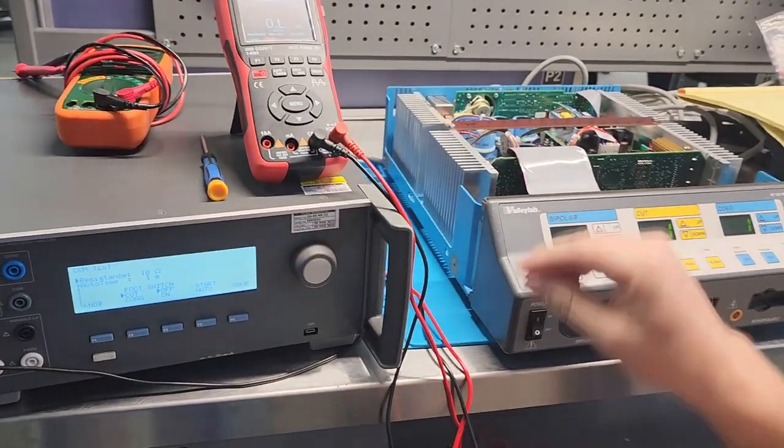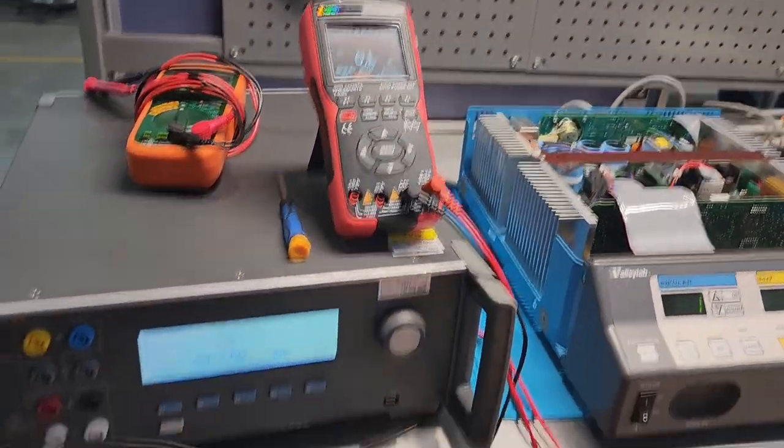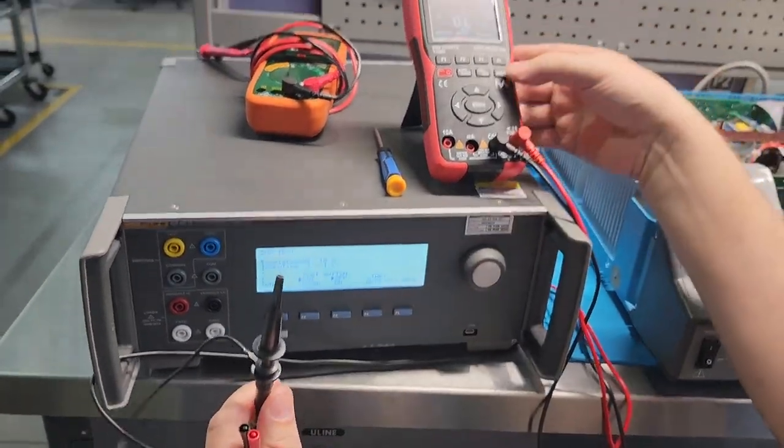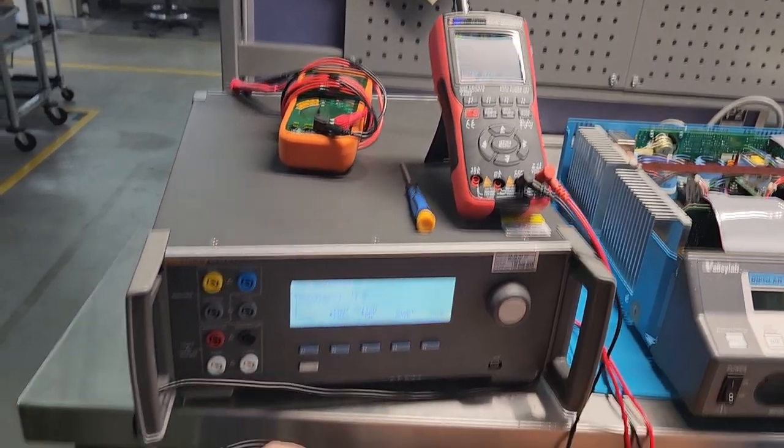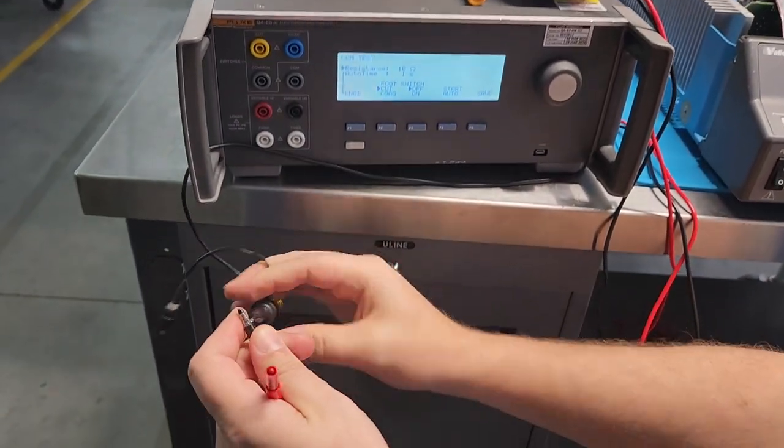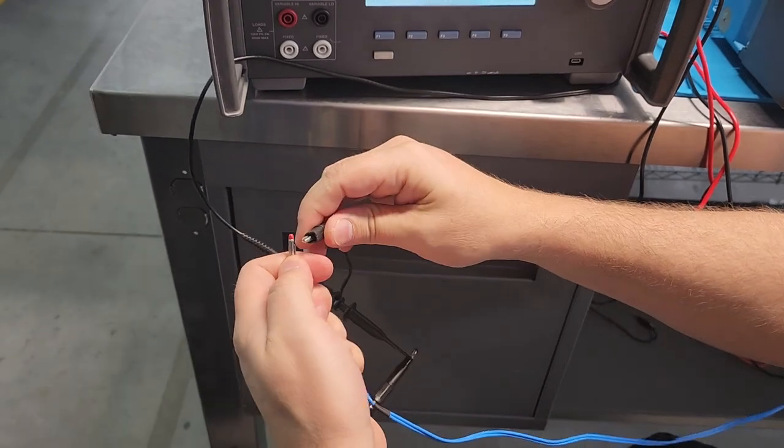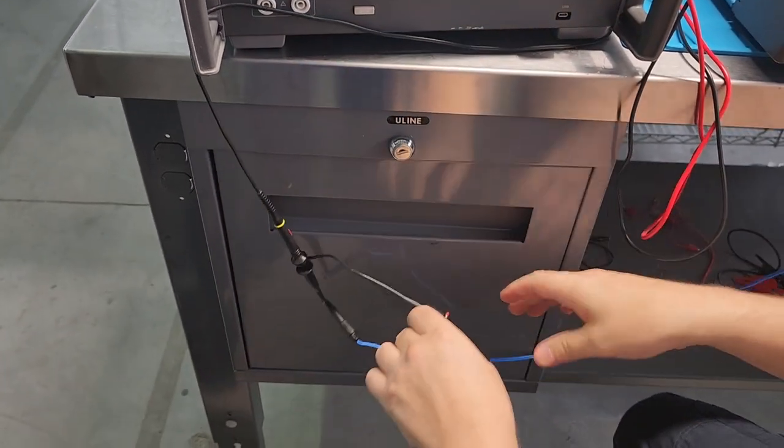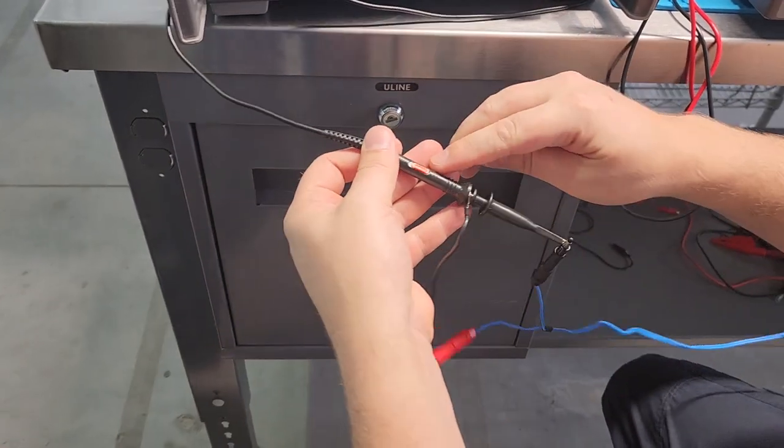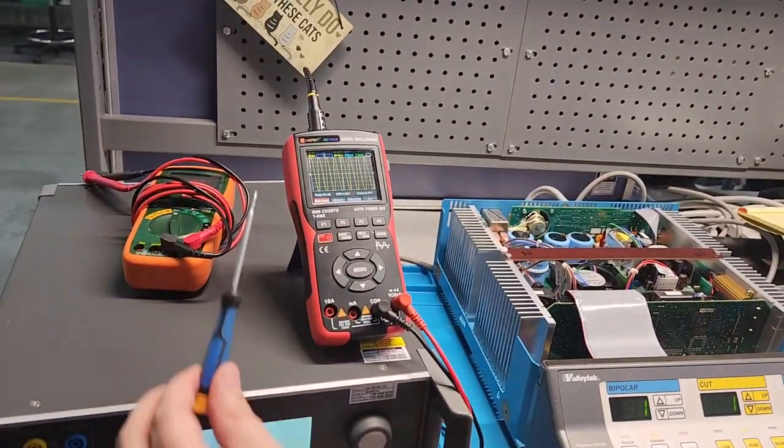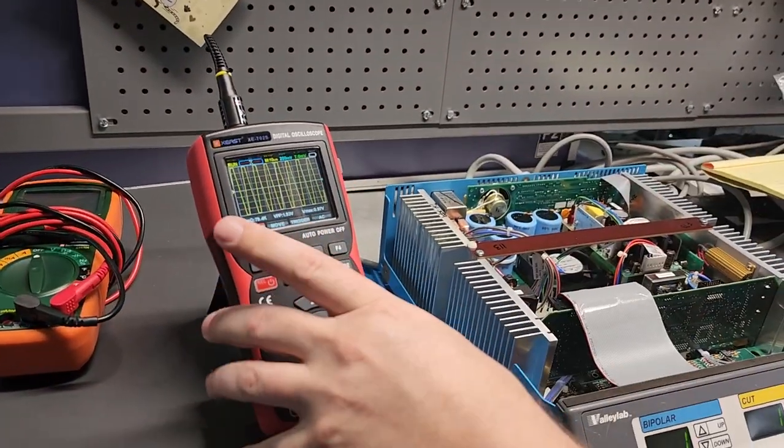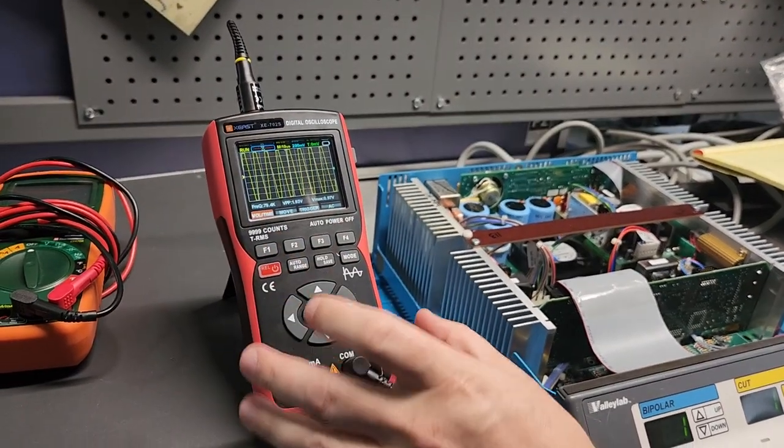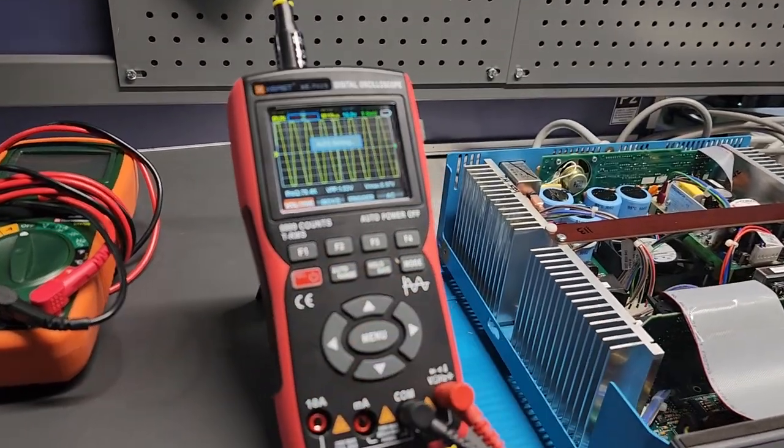while it's plugged into the REM, we have to take it here. I've got my oscilloscope set up and I'm going to hook my probe like so. You got your reference, you've got your probe set on 1X, and I have a tiny little flat blade screwdriver. And you can see that my waveform is way off. I'm going to hit auto.